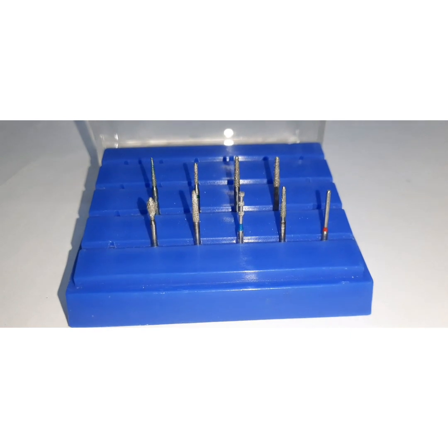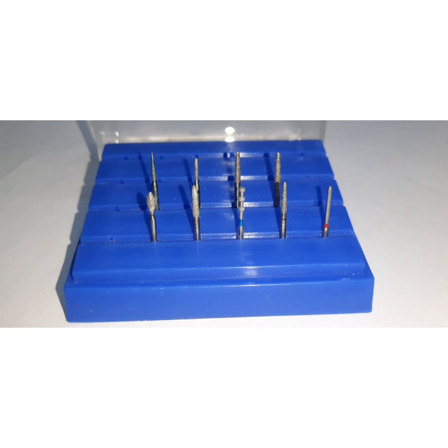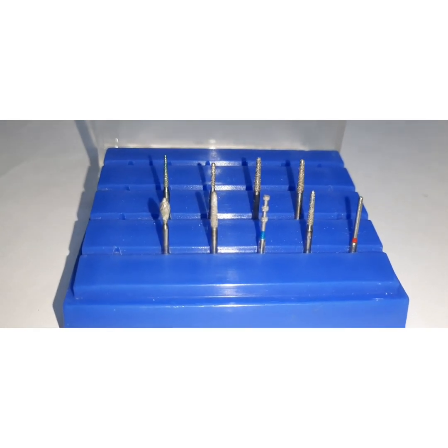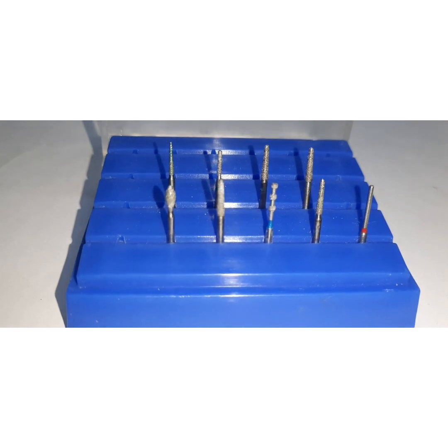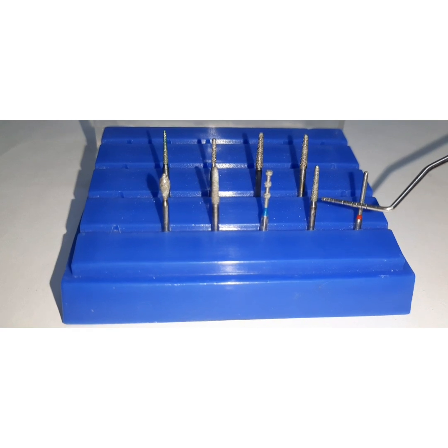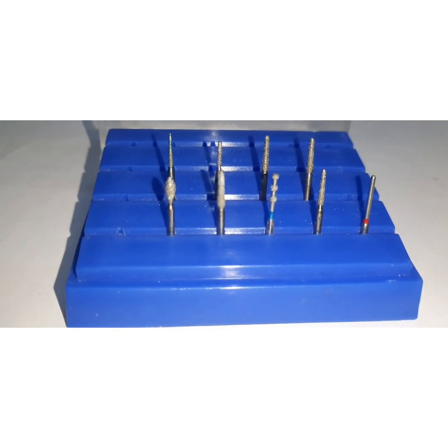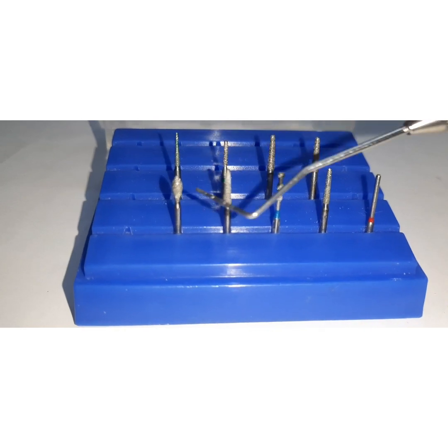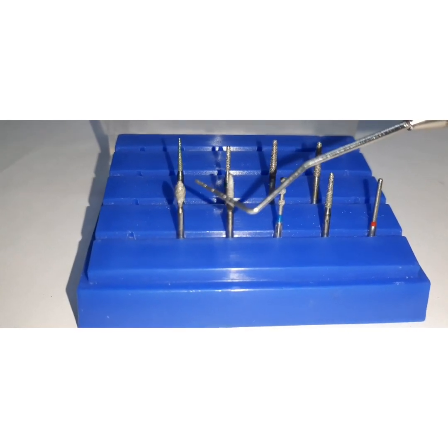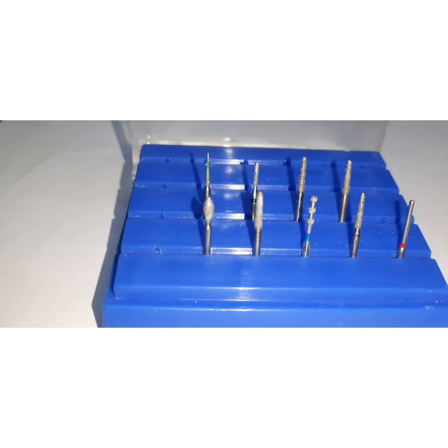Regarding the armamentarium required for laminate veneer preparation: you do not need an extensive set of instruments. You require depth cutters, a round-ended tapered fissure bur, and finishing burs. A football diamond may be needed if extending the preparation onto the lingual surface.